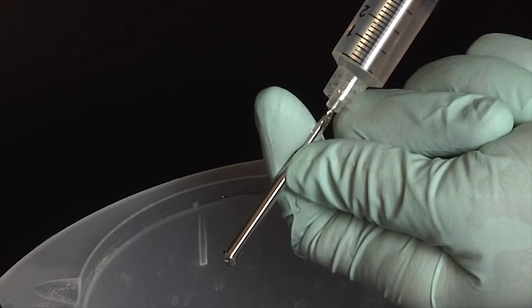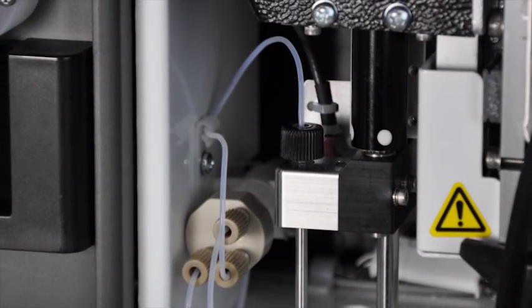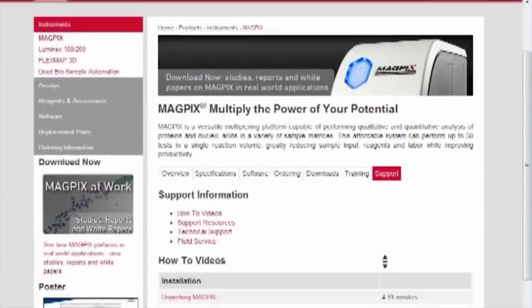Removing the probe to clean it does two things. First, it removes any clogs the probe may have. And second, it resets the probe height when you replace the probe. Both of these can cause issues with the proper functioning of the MagPix instrument.